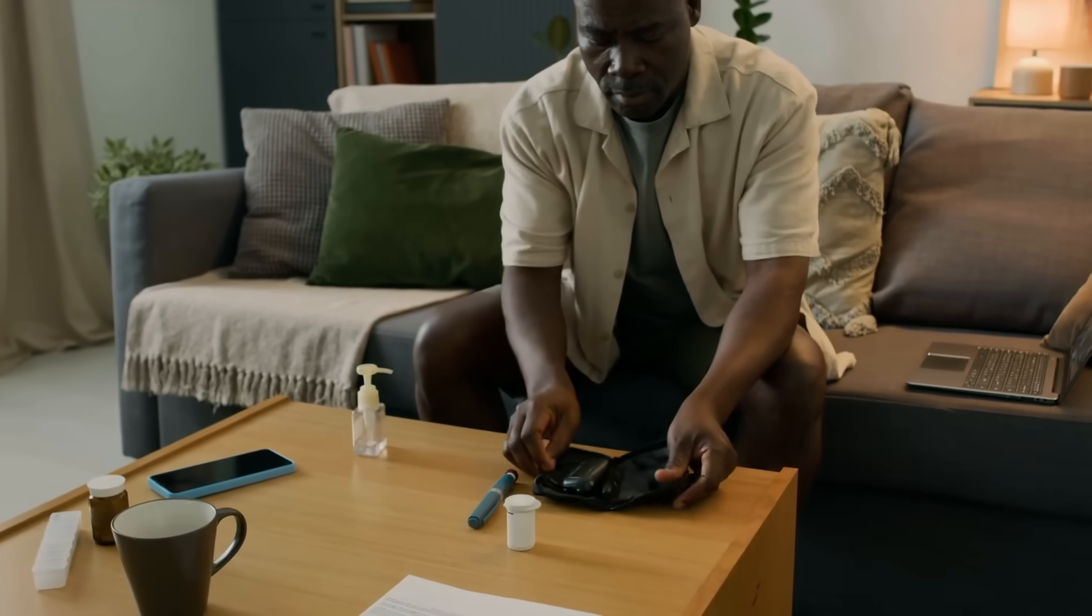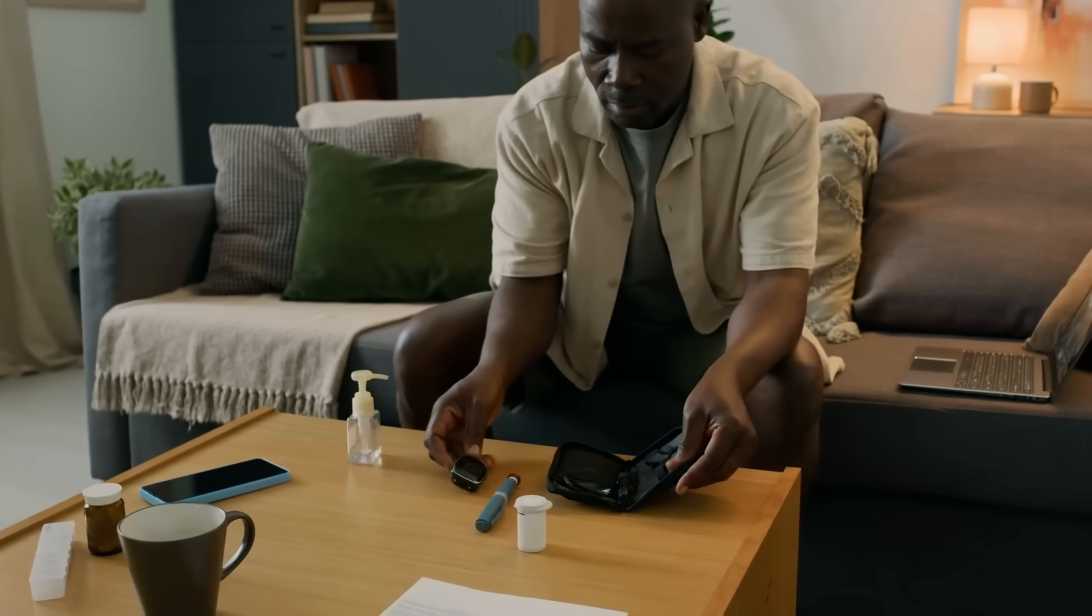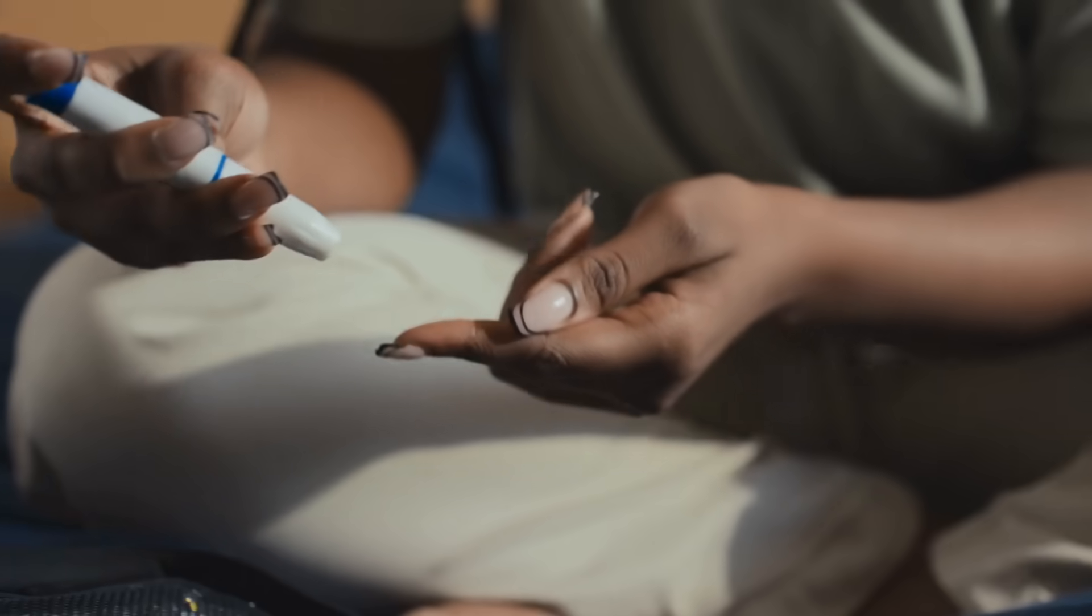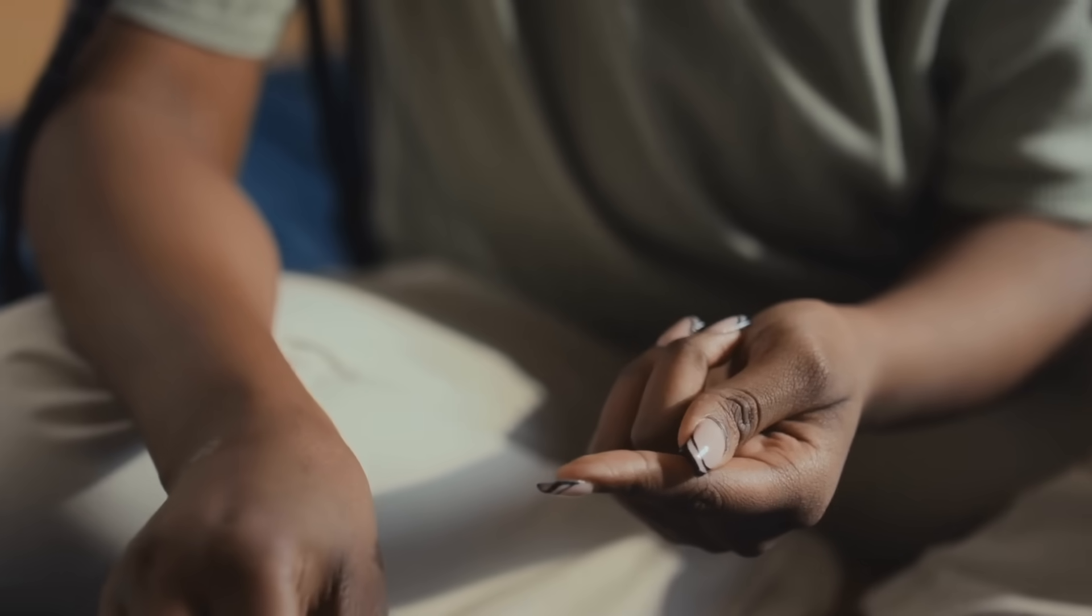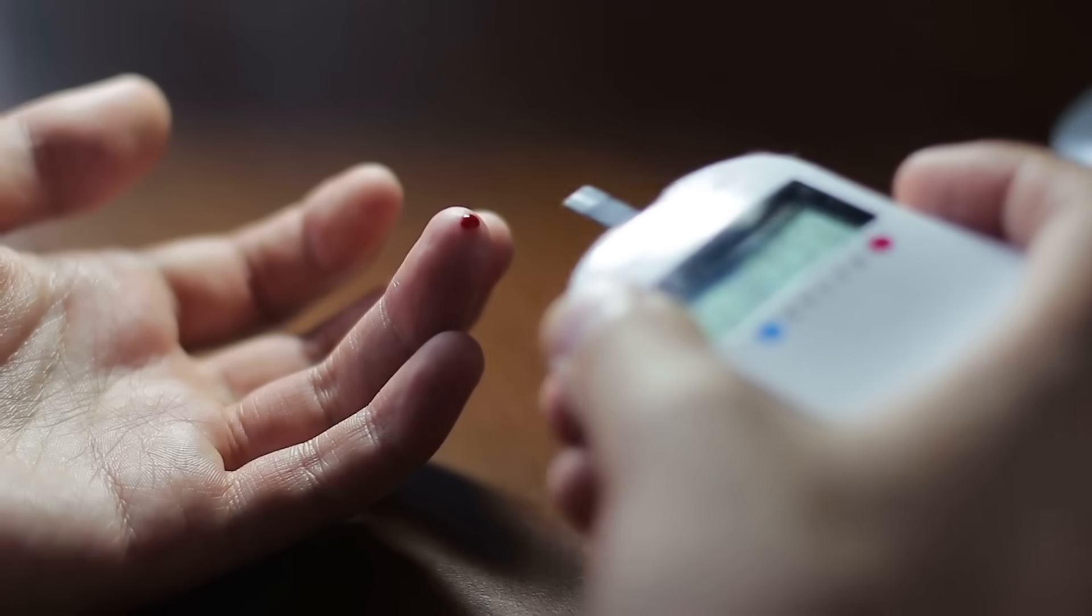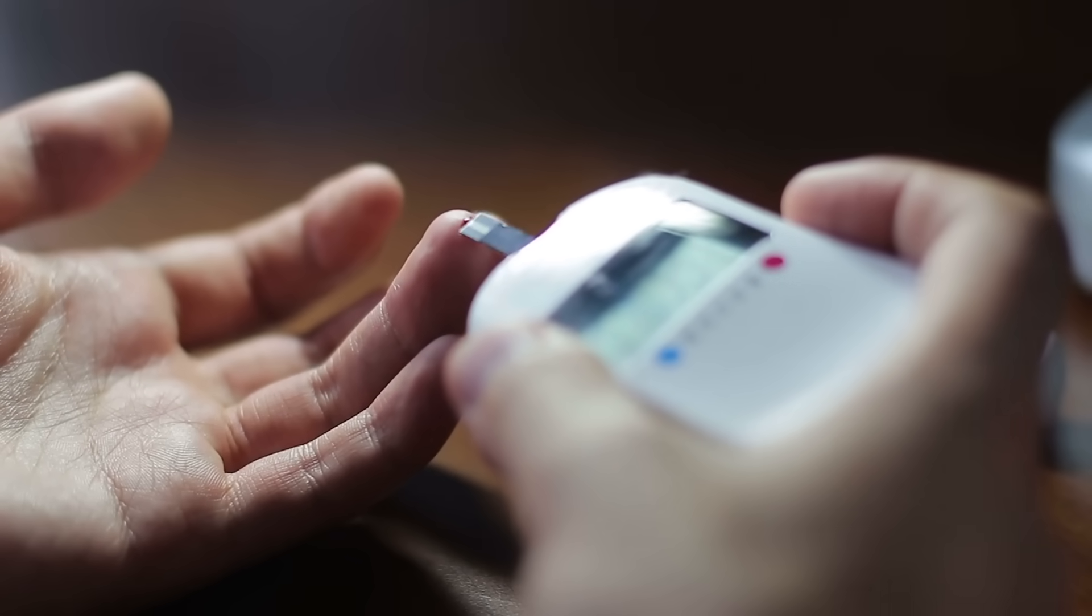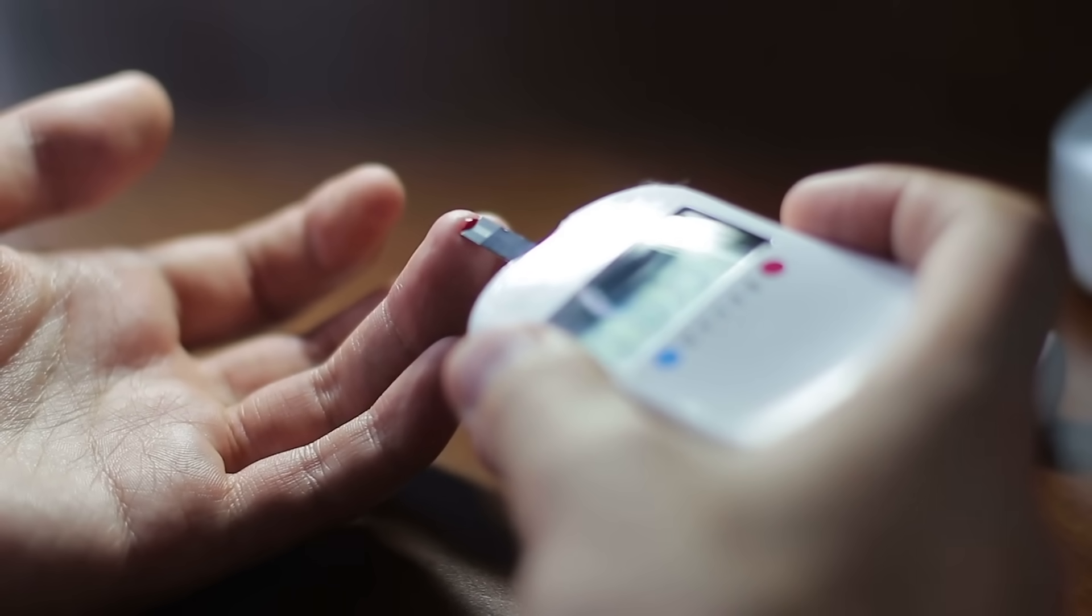For those of us who don't use glucose meters, it's easy to take such technology for granted. But the next time you see one, take a moment to appreciate the complexity behind this small but mighty device. It's a reminder of how far we've come in understanding and managing our health, and a glimpse of the exciting innovations still to come.